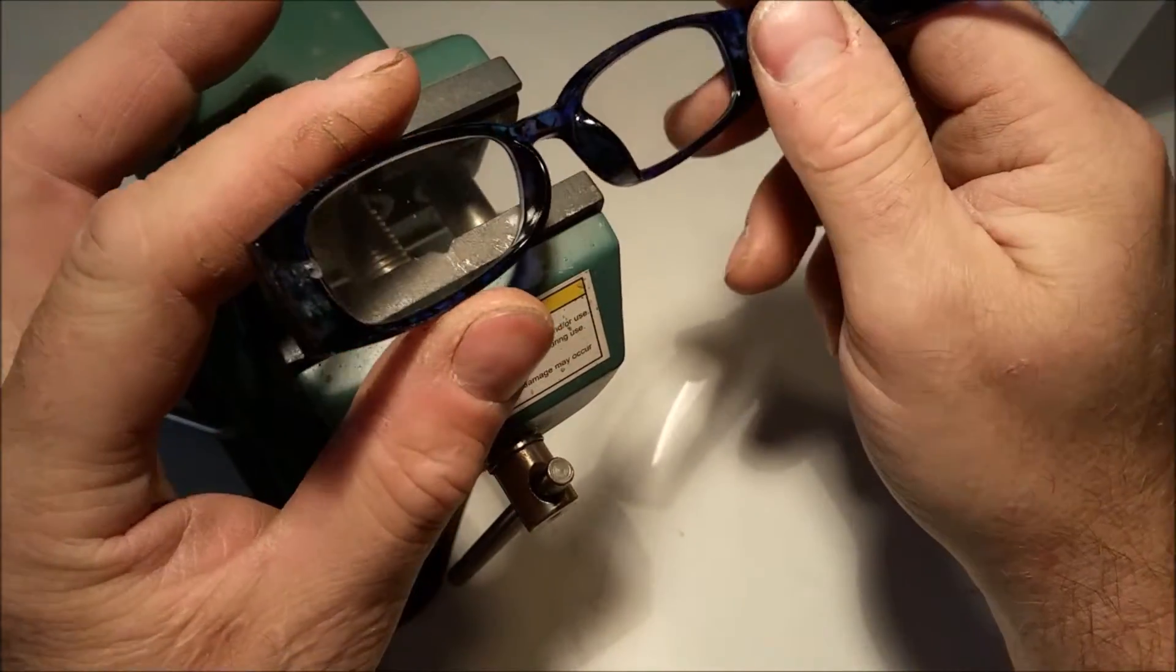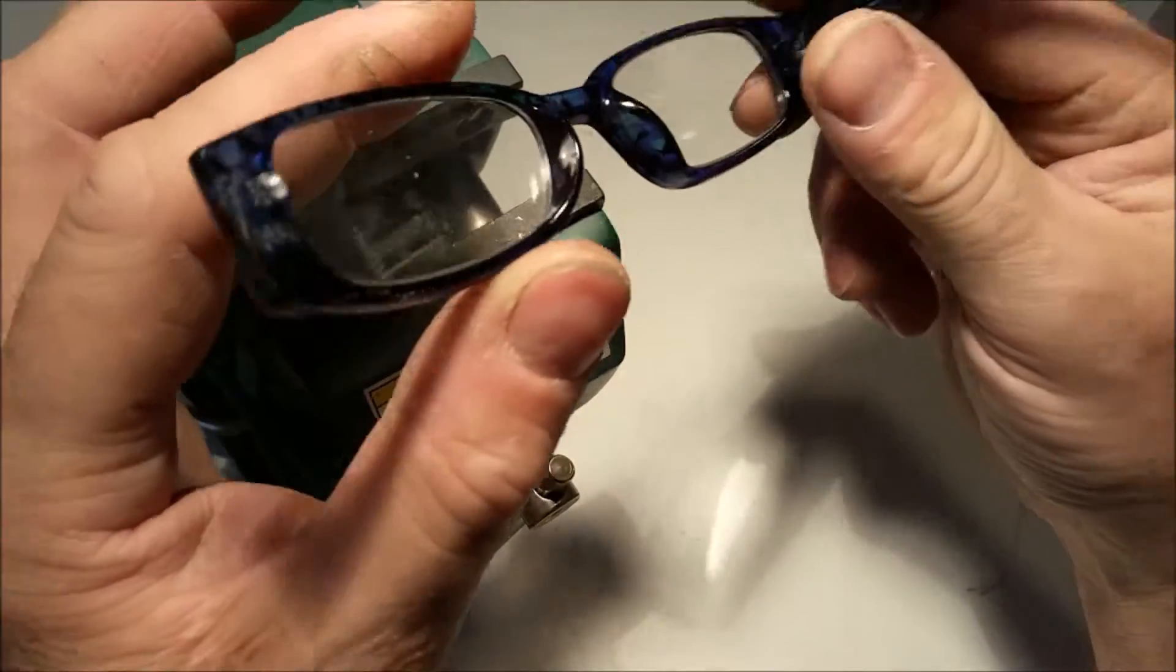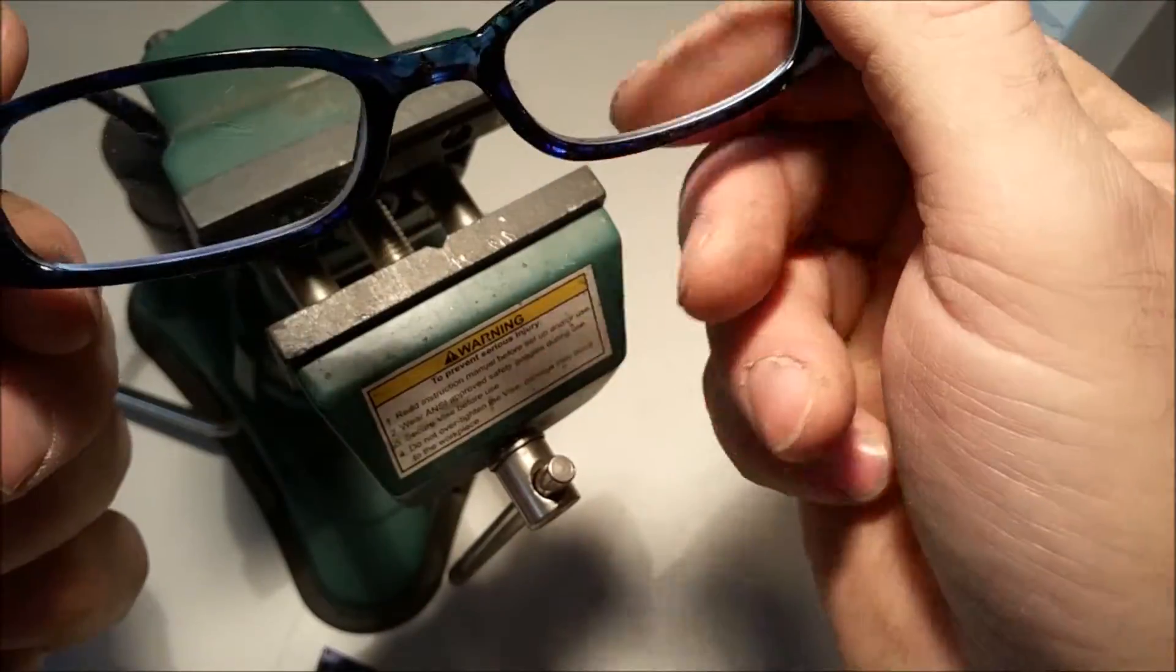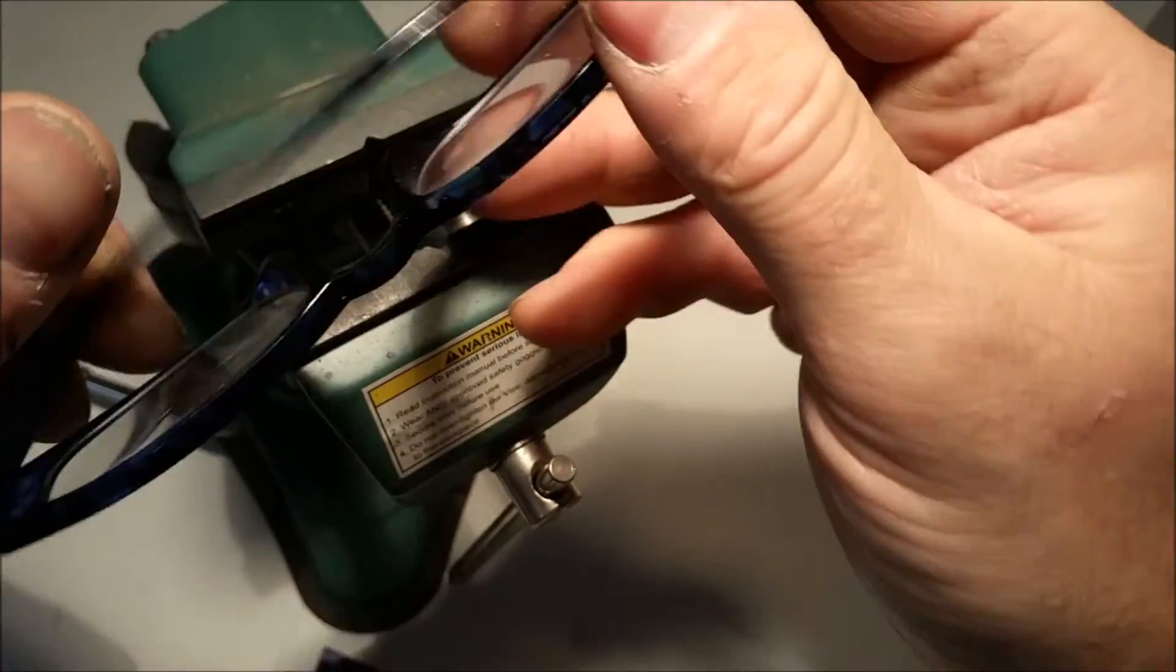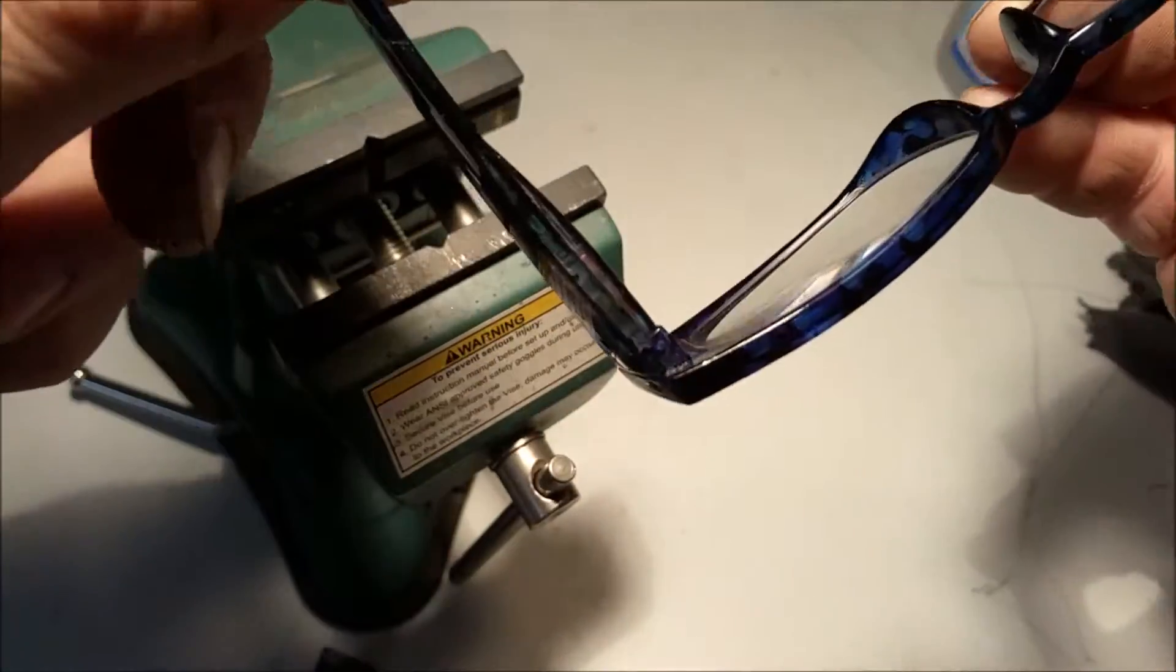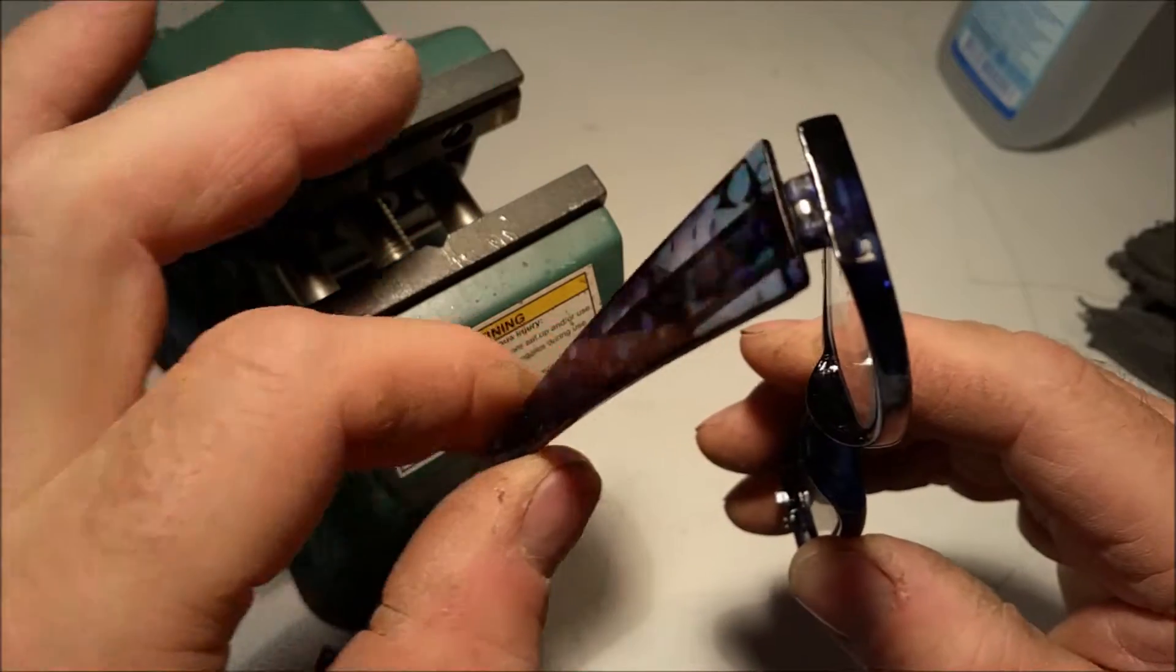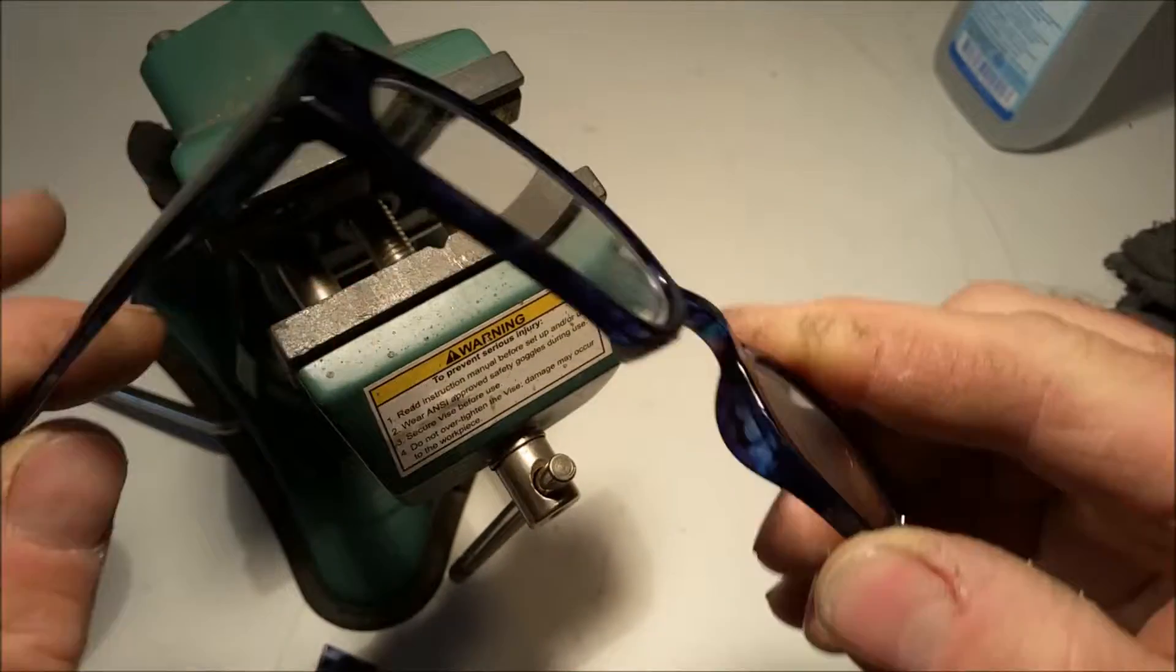Hello, I'm gonna show you how to repair a sunglass, an eyeglass. This is a 99 cent store eyeglass. It's supposed to be like this, just a normal glass screw in there, a pin.